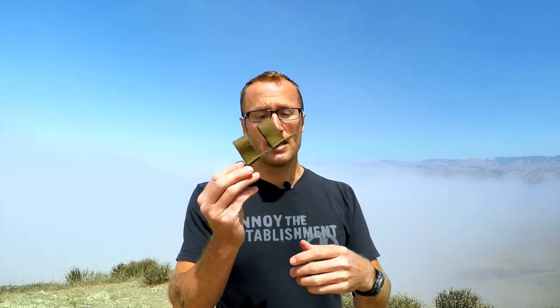I use them on my battle belt as well as on my plate carrier over on the cummerbund. Also, the way these are set up, a lot of med kits — to include Blue Force Gear's trauma kit — have it set up on the top sides with a really short one-by-three MOLLE field, in which case you can throw this on there as a way of fixing your tourniquet to your med pouch.